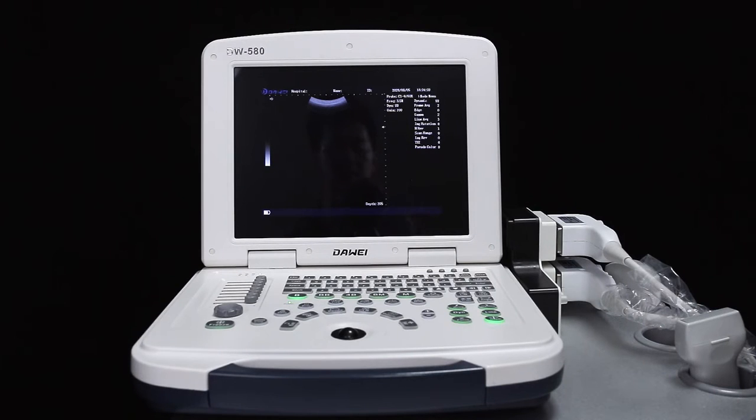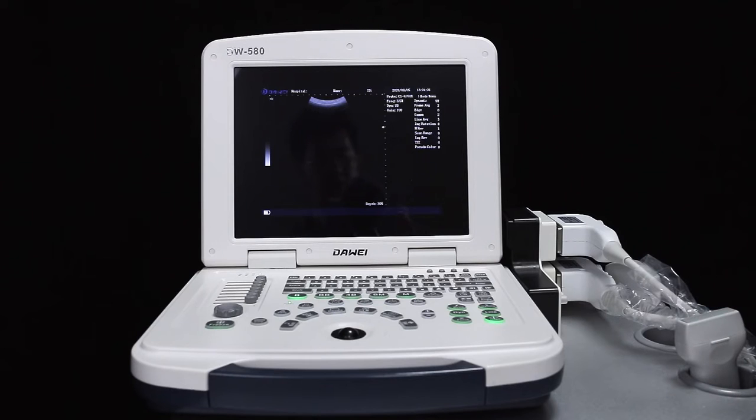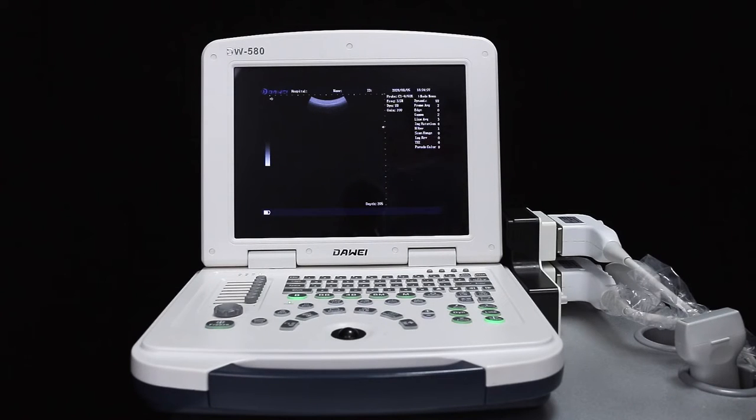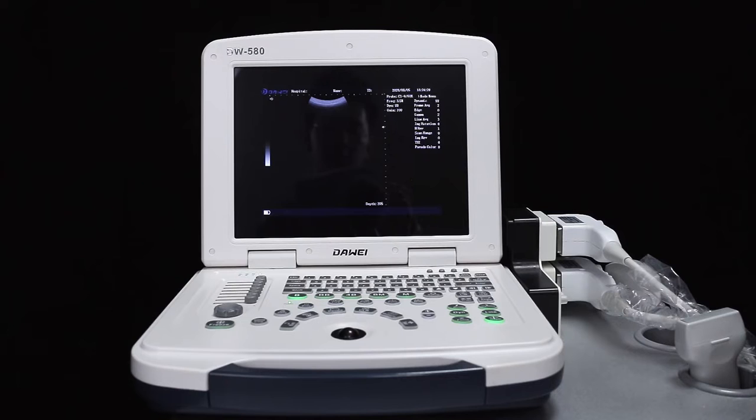This tutorial covers how to create new patient information, perform measure steps, generate reports, and how to save pictures and playback videos.